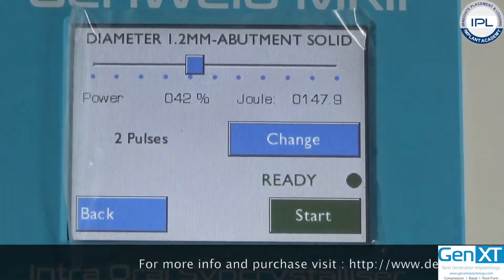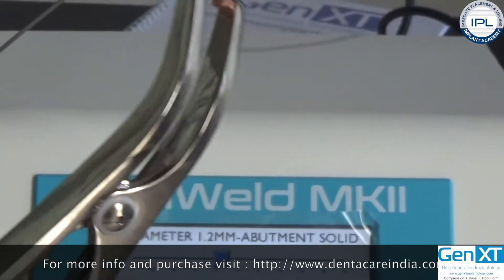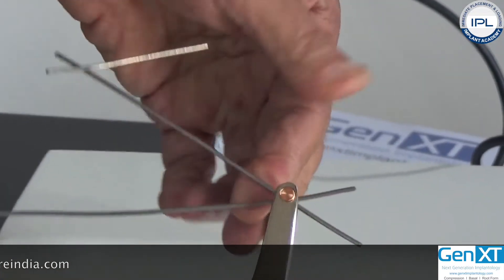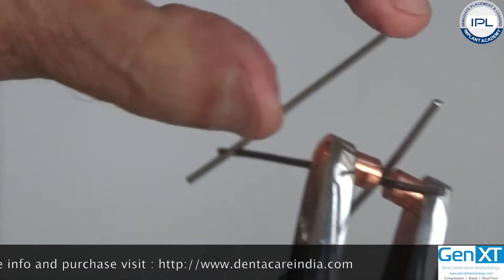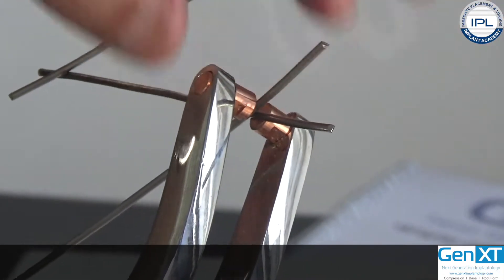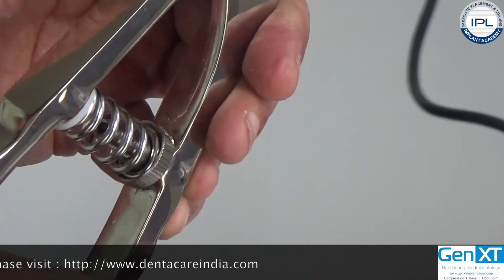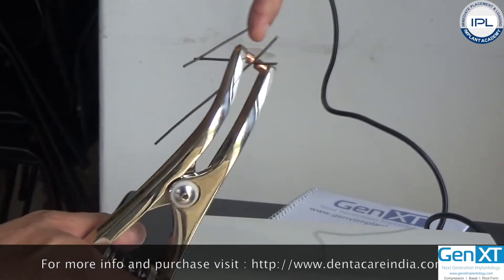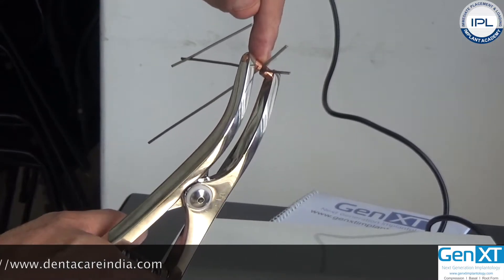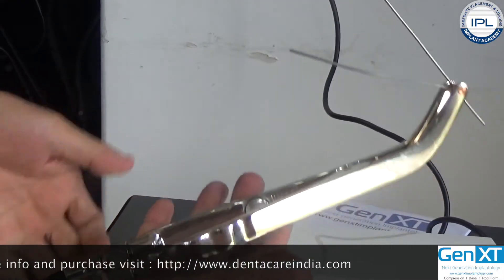Take the two titanium bars and the handgrip. When you press the handgrip, it is spring-loaded and the beak end opens. In the copper electrode, hold the part to be welded. Make sure to keep the copper electrode beaks very clean, hold the two components in center position, and after positioning the parts together, release the handgrip. A common mistake is pressing the handgrip during welding, which creates a small gap and causes sparking due to open air space. Just hold the handgrip without pressing it.